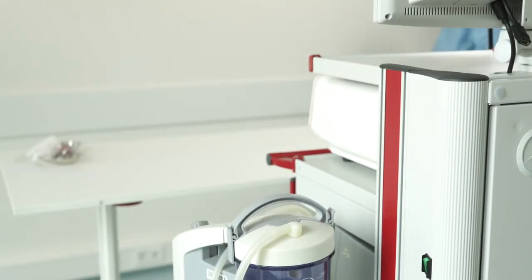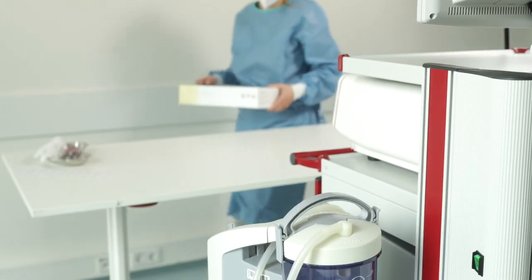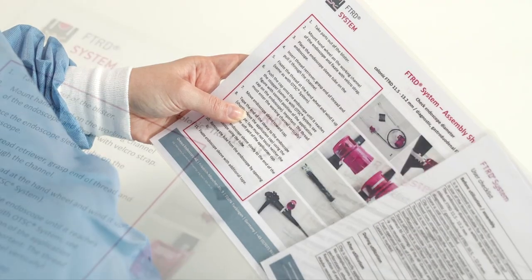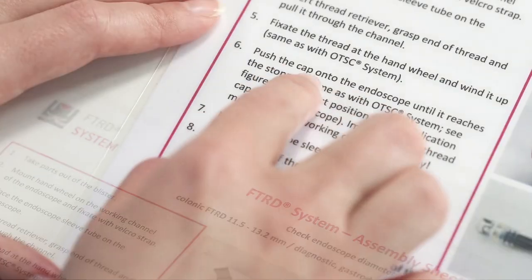For the safe use of the FTRD, there are a few important aspects to consider, which are presented in this compact video. You can also find this information on our product-specific info sheets.